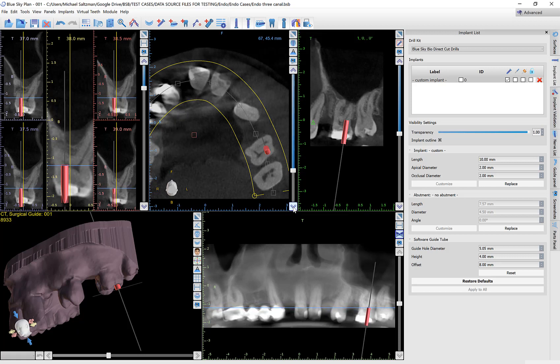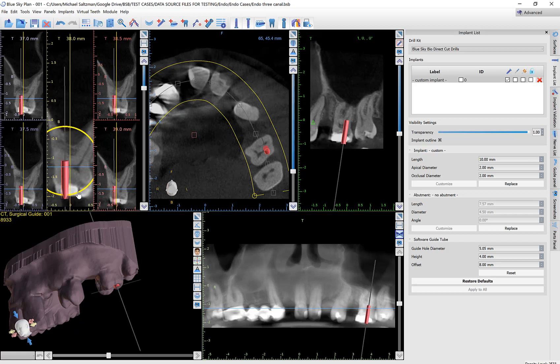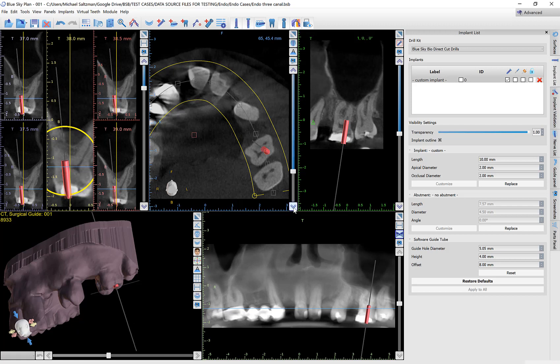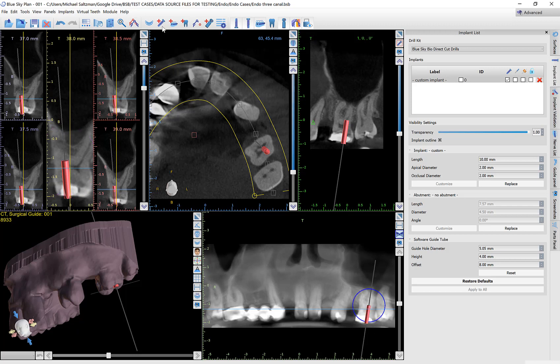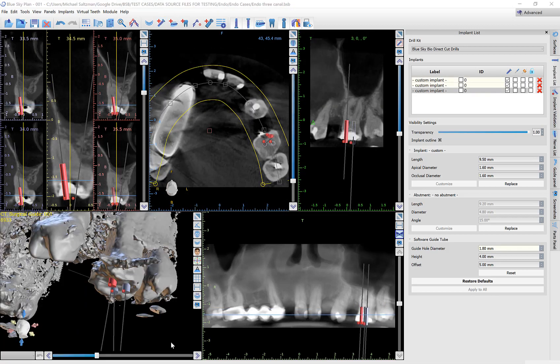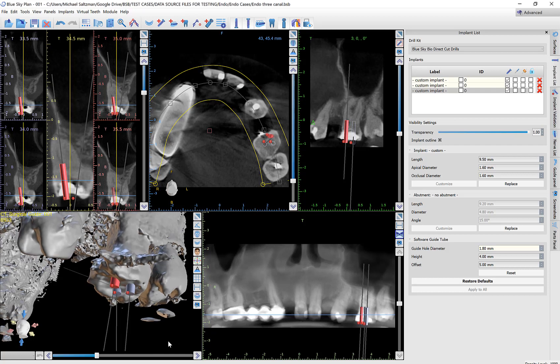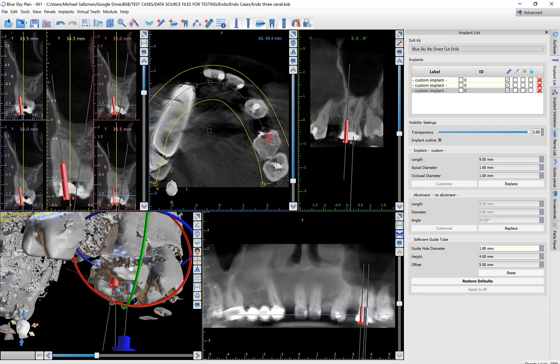Now if we go through our axial slices and track the canal as we're moving closer to the occlusion, we can update the positioning of the implant and rotate it — keeping the tip in that original position while angling the implant correctly. This defines our drill path. Once we have our initial implant placed, we can go ahead and place additional implants in the same tooth or in other relevant teeth as needed. In this case we now have three implants placed, each representing a drill path. When we create the surgical guide and enter the drill depth, the drill will bottom out at the tip of each of those three implants.